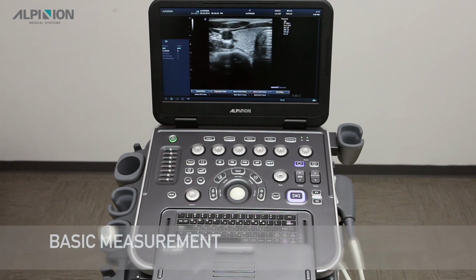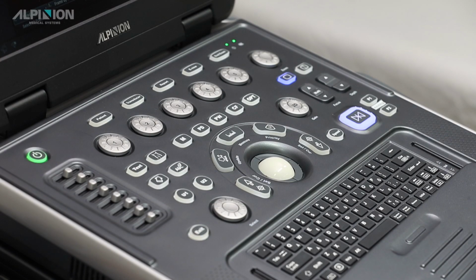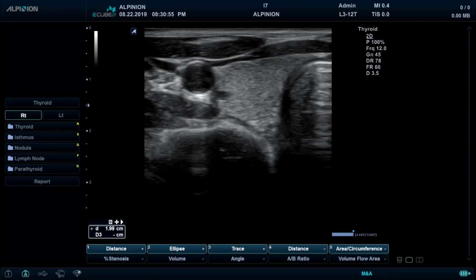Step 7. Measurement and Report. Basic measurement. For simply measuring distance, press the Measure button, then use the trackball to move the caliper.